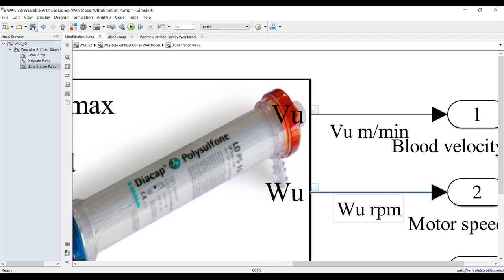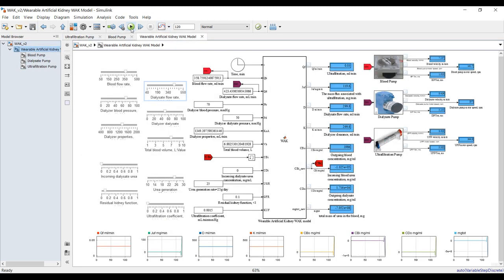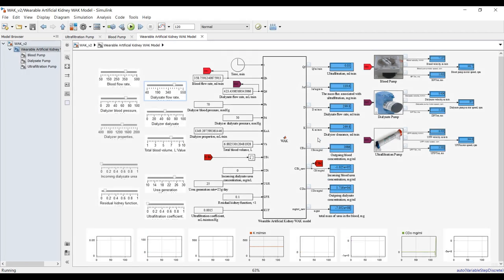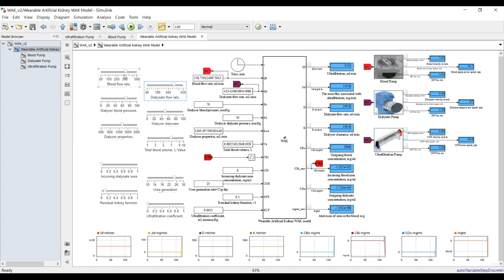Save the model. Let's hit run and see the results. This is the first run. Now let's try to make a second run by reducing blood flow and reducing dialysis a little bit, and see the outcome.